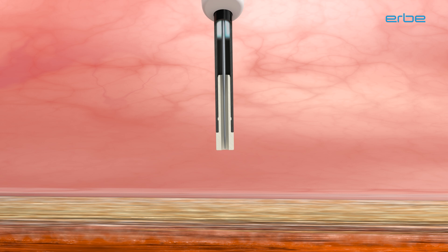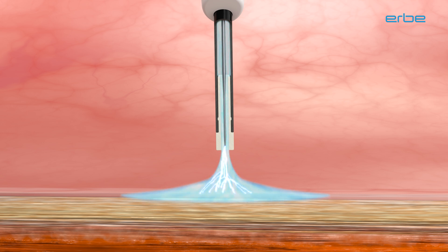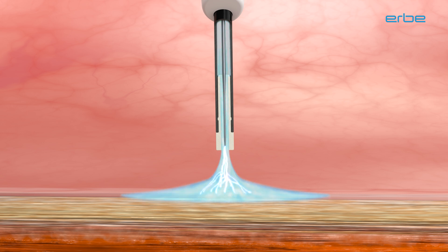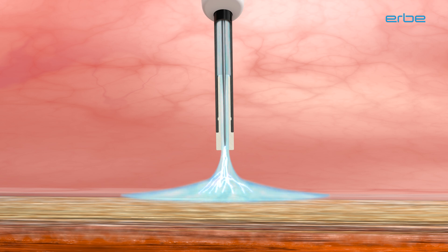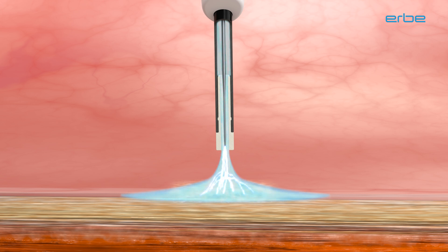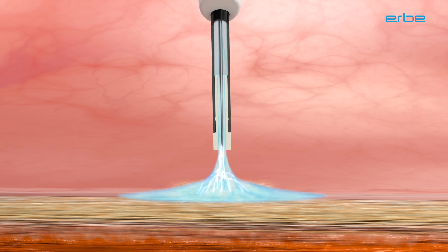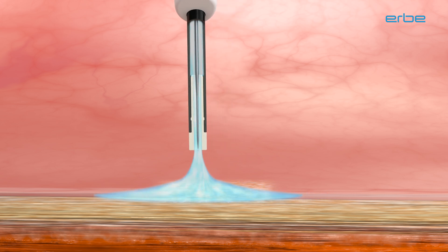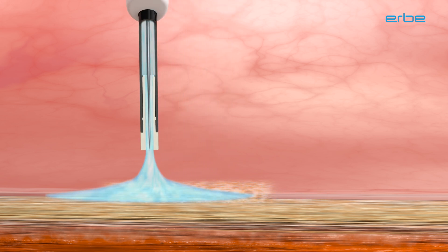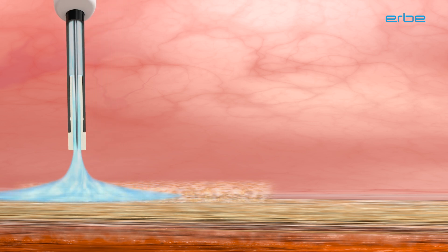This conducts the current contactlessly onto the tissue and produces the desired tissue effect. Compared to the sparks in conventional electrosurgery, the plasma in APC is longer and the propagation is more superficial.